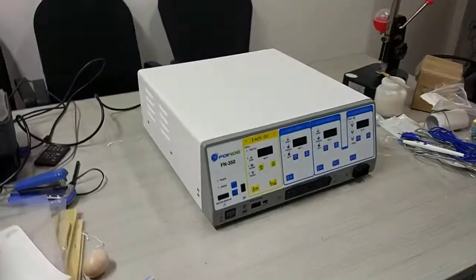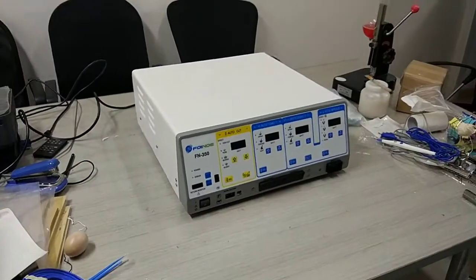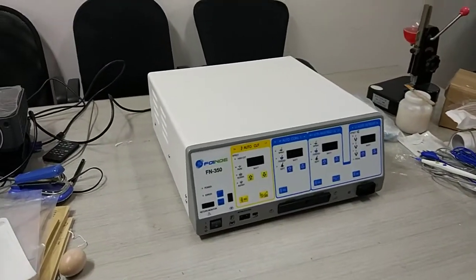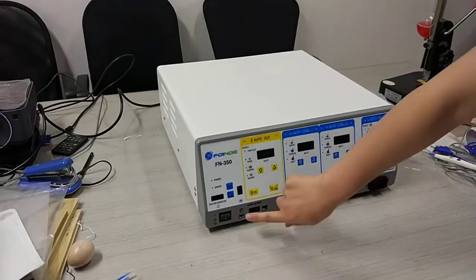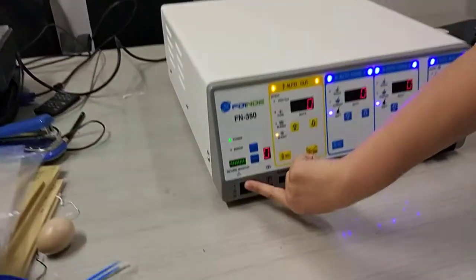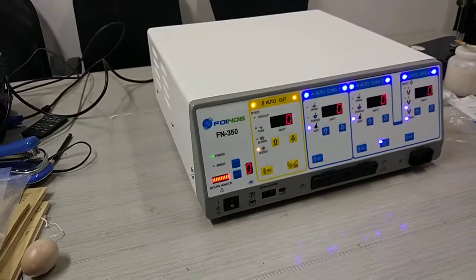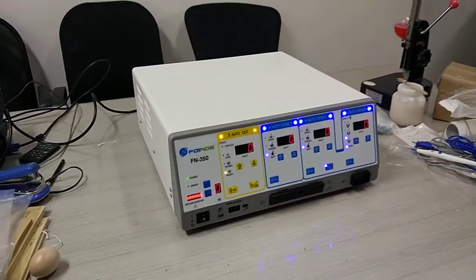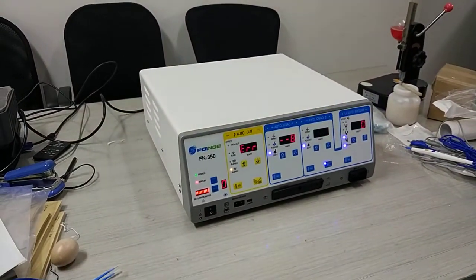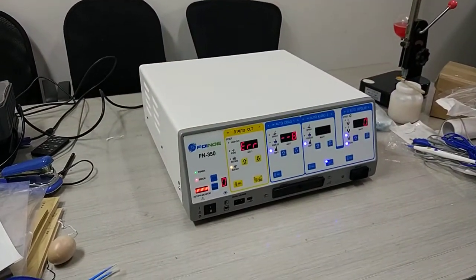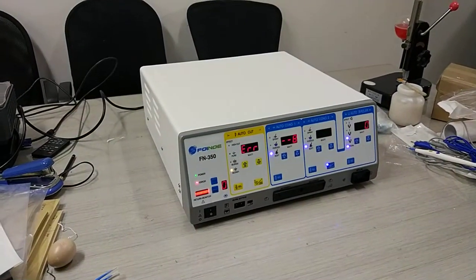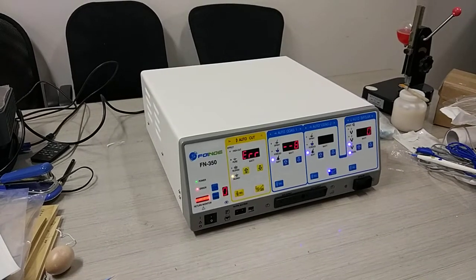Now let's switch on the power button here. When you hear this sound, don't panic.